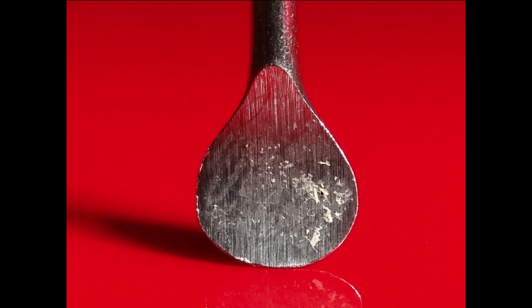We basically don't want to sharpen this portion of the instrument. This is where people make the mistake and feel that this is the surface that needs to be sharpened when it does not. We should minimize any abrasion on this portion of the instrument. It might be best to use one of your periodontal curettes to scrape this so we minimize decreasing the volume of metal on this surface. As we do, this gets thinner and weaker. We want to keep these instruments for life.